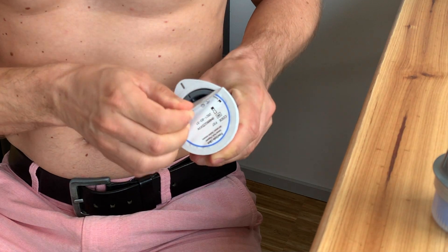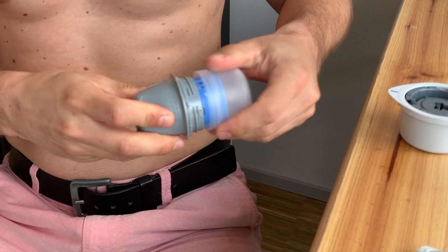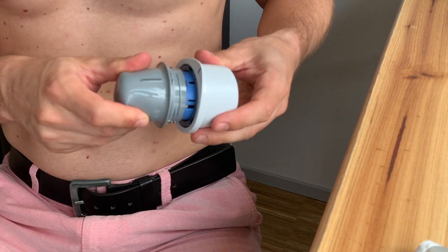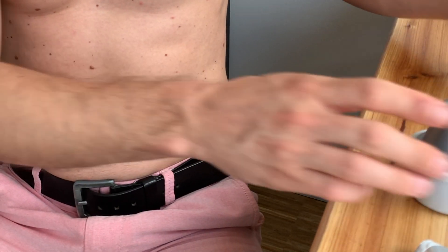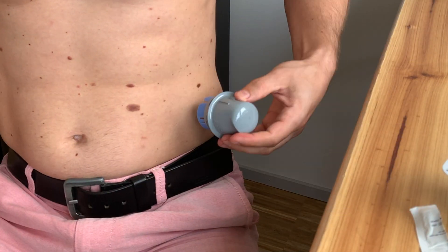So let's talk about placement first. I placed the sensor about 2 inches or 5 cm above my waistline. I'm using the front section of the hip, which is slightly less exposed to external objects that might rip out the sensor compared to the outer section of the hip. This is the place I liked the best, but it also had its disadvantages which I'll get to later.